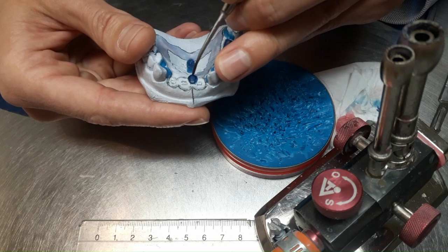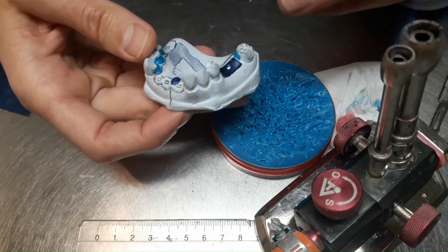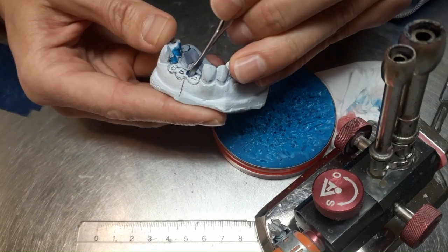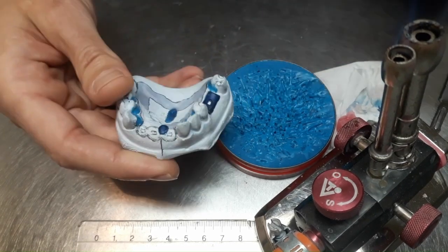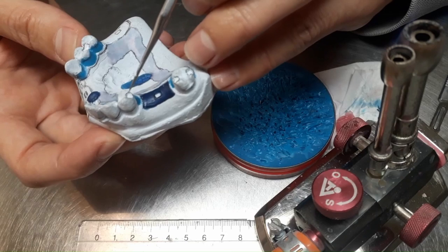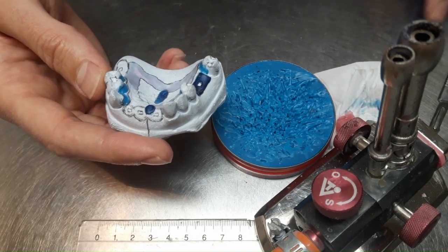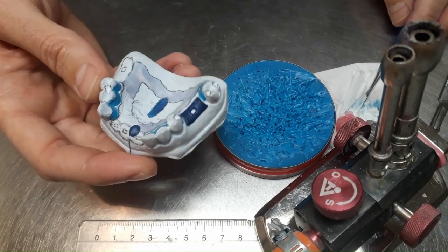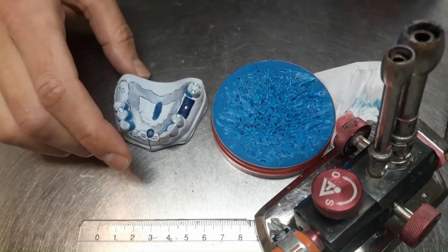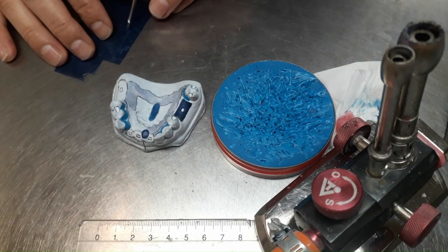So the resiliency of the mucosa there is minimal, 0.1, 0.2. That's why we want to protect it from the pressures of the metal framework. Possible pressures, right? Although the metal framework sits on the teeth, you see those rests that will discharge the forces on the remaining teeth. That's true, but nevertheless, we want to make sure that nothing will happen. Yeah, because of those things, you understand that the metal framework will not sink into the gum. That's true, but that's what I was saying. Let's make sure.